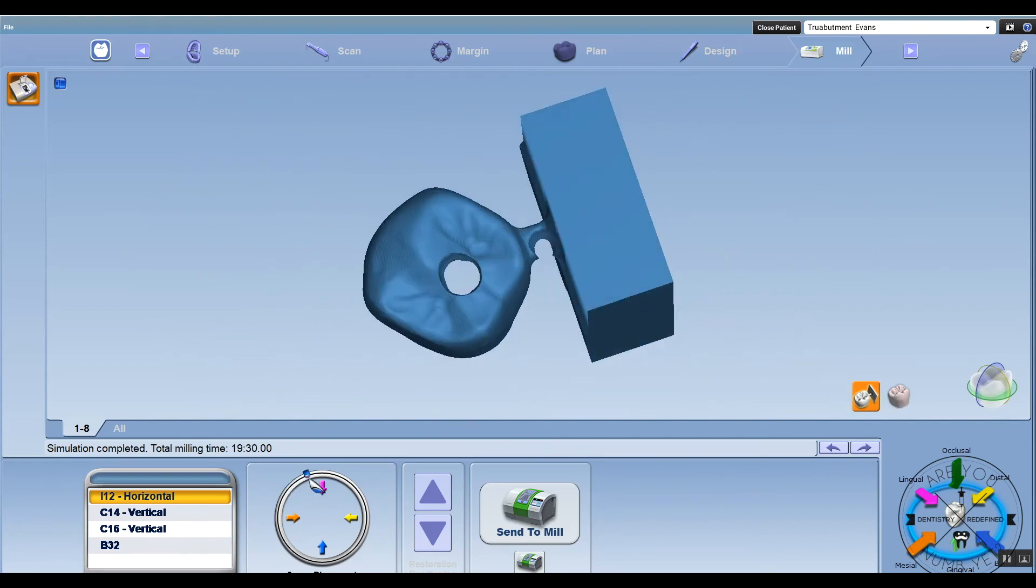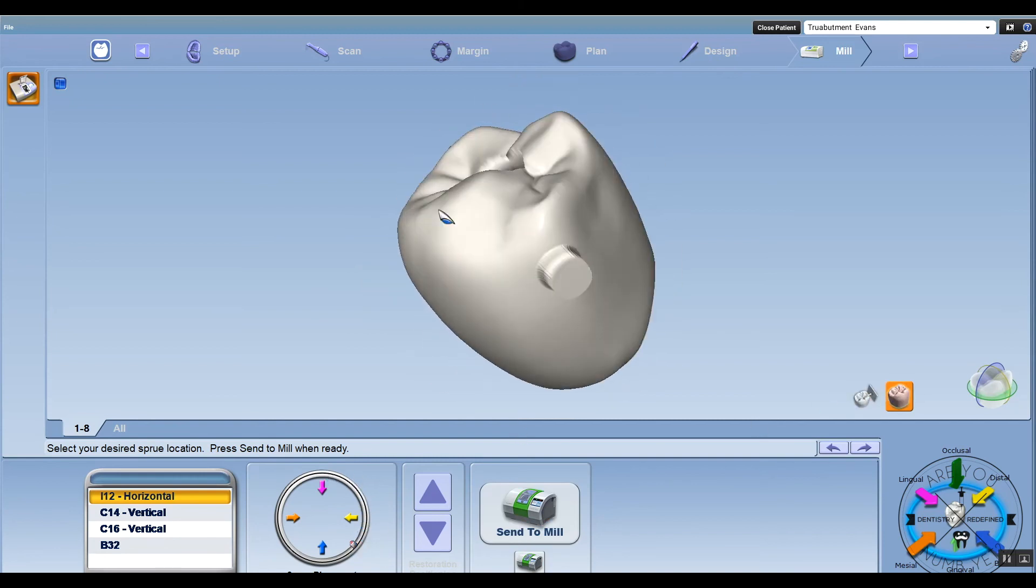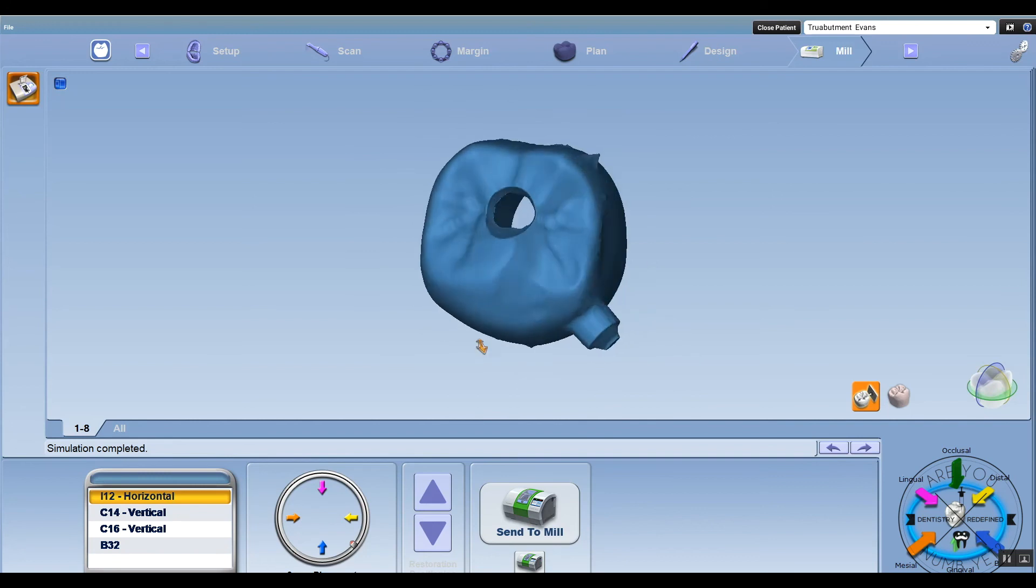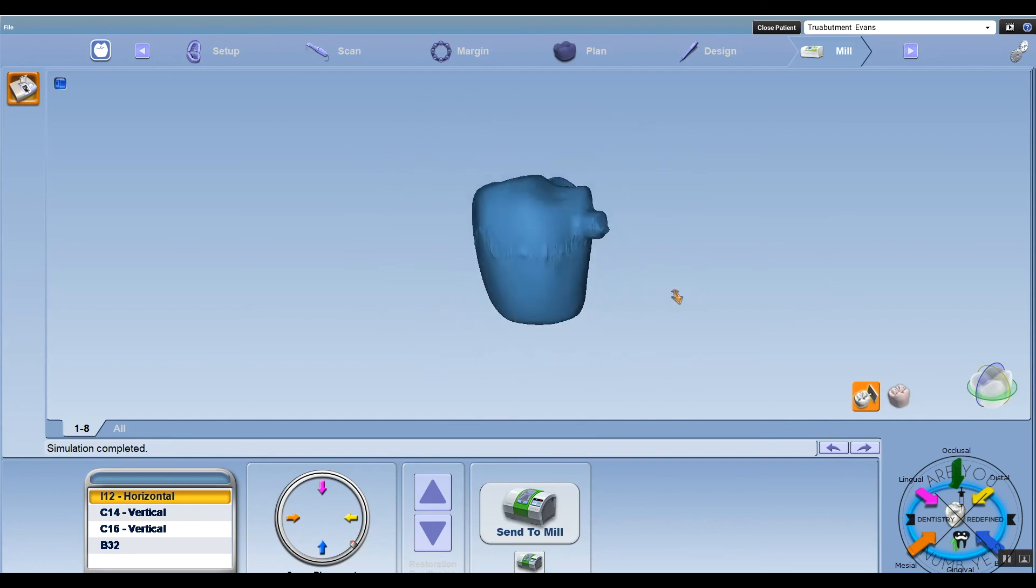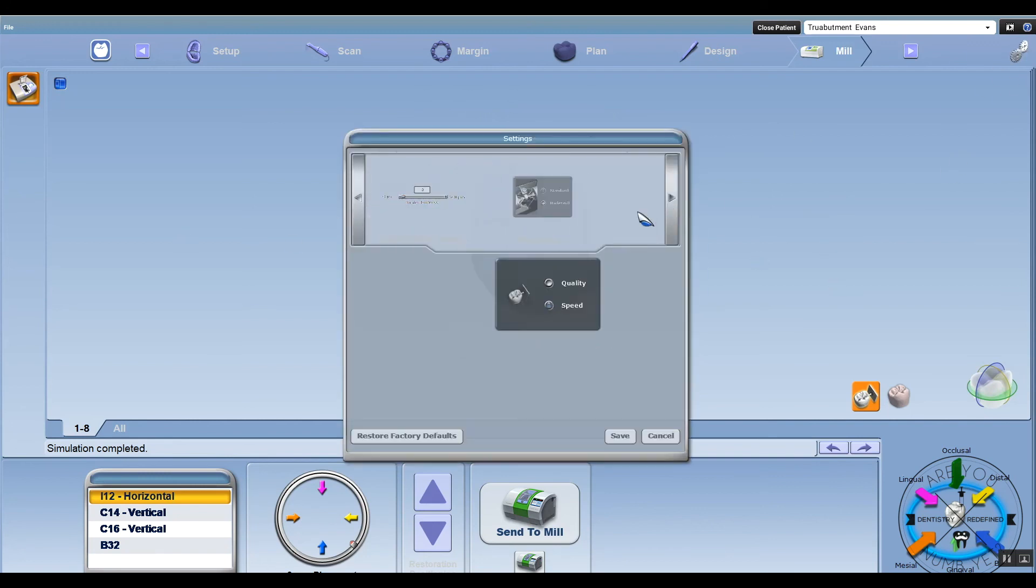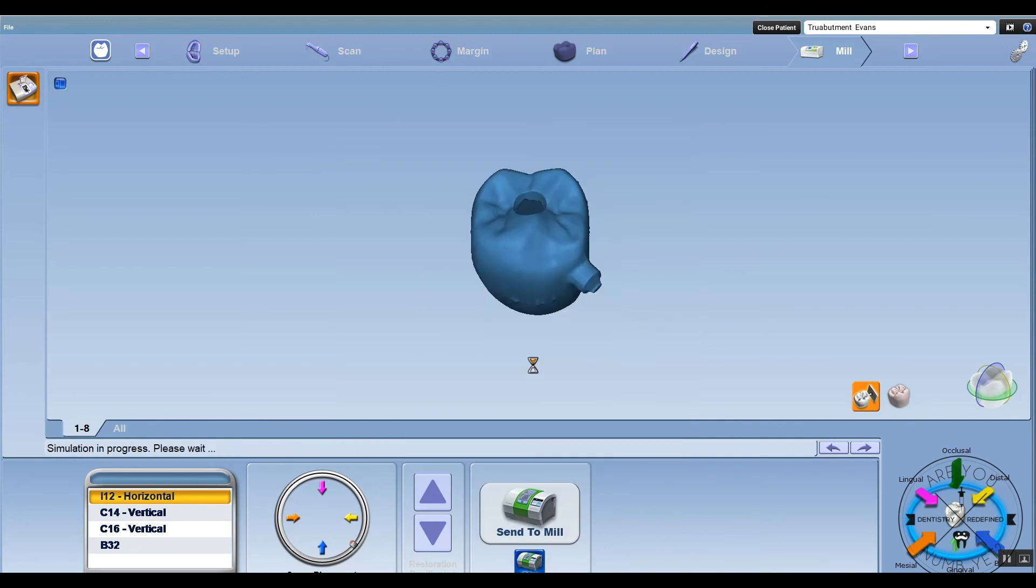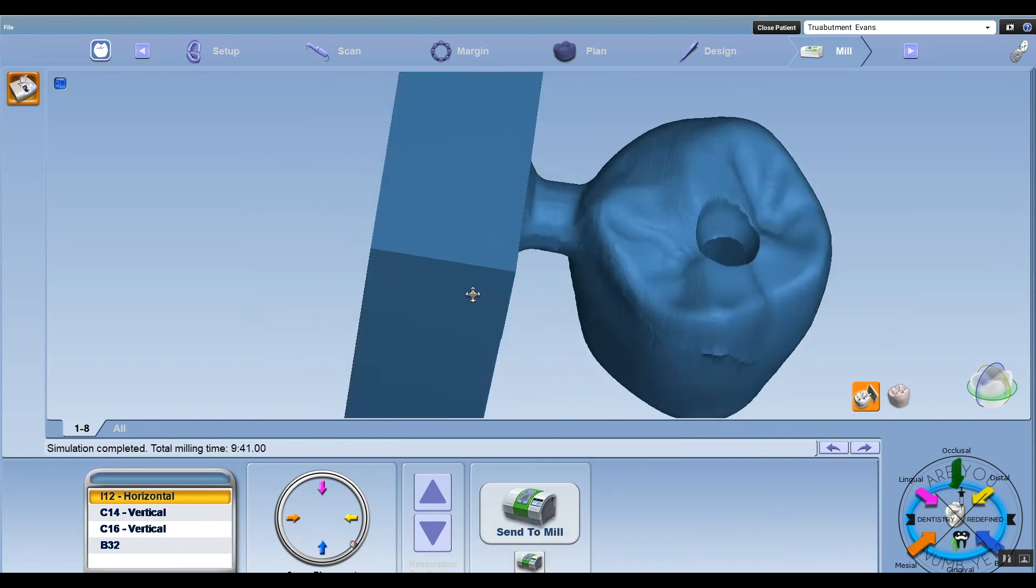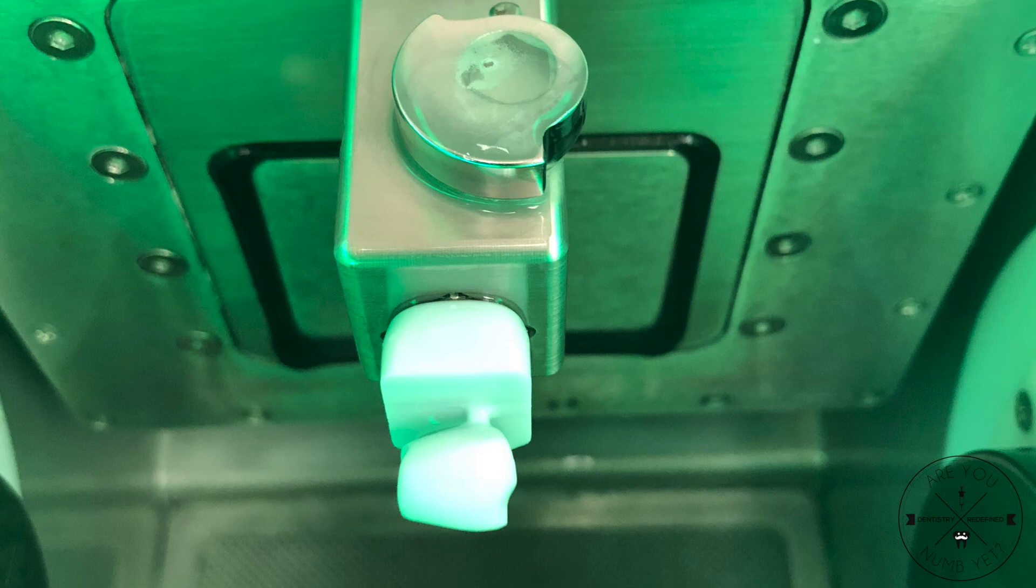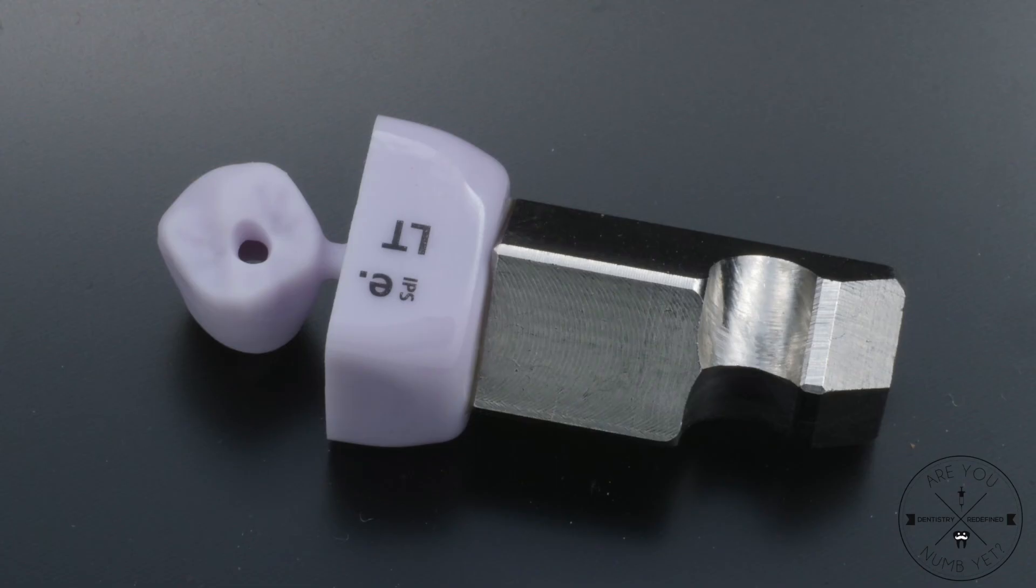When you do that and you do a sim, it takes longer. Sim in detail and sim in standard and see what the difference is. Most of the time I'm milling in standard, but look for weird little things like that notch in the sprue or any kind of strange things that you might see. Move the sprue position around and redo the simulation. Then go back up to the settings and change back to quality sim. Sim that out under standard mode and detailed mode and see which one you like better. 99% of the time you just mill in standard mode.